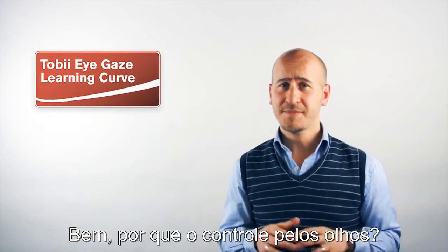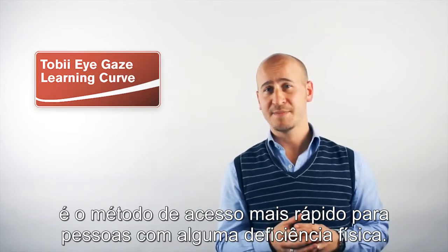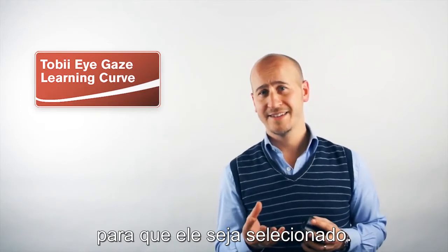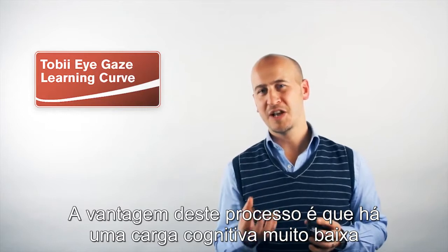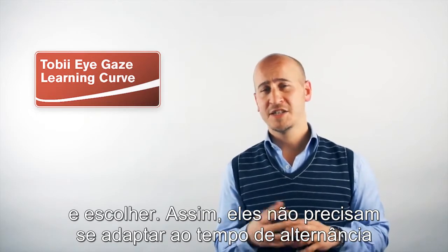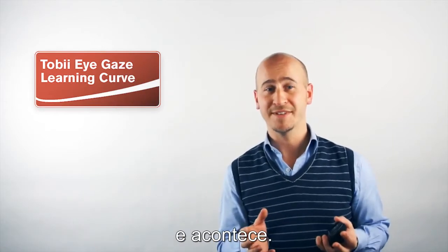Why eye control? Eye control is an access method like no other. Put simply, it's the fastest access method for anybody with a physical disability. Users can simply look at the object they want and it will select. The benefit of this is also that it has an extremely low cognitive load attached to it. Users can look and choose and therefore they don't need to learn switch timing or the ability to move a joystick or a mouse to the requisite part of the screen. You look, it happens.